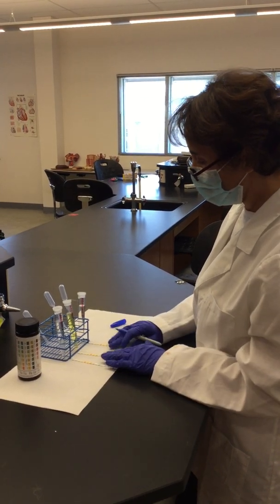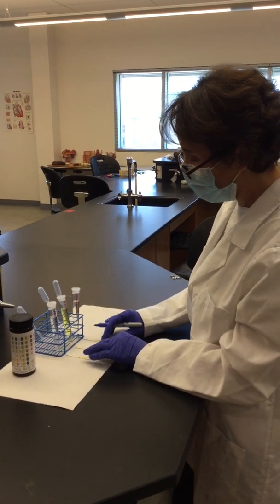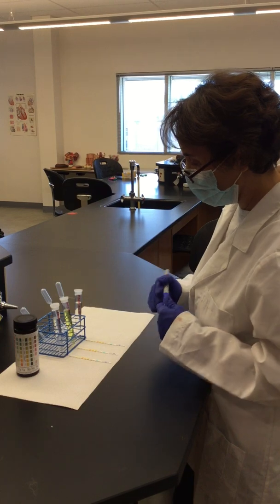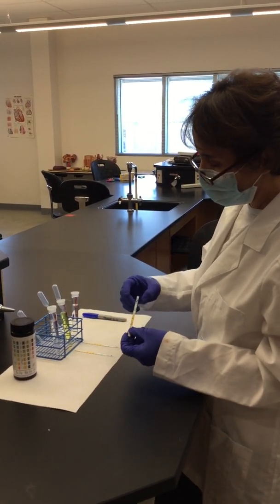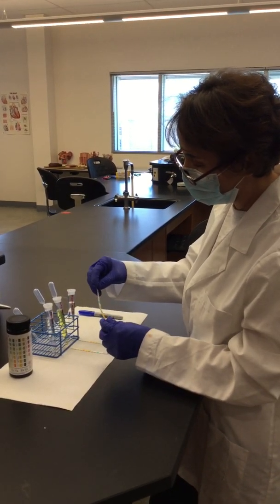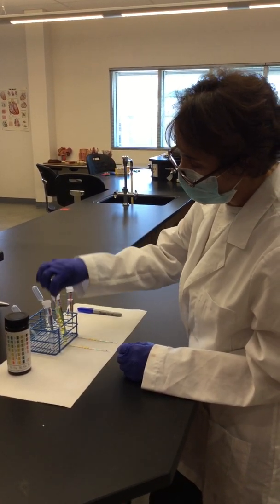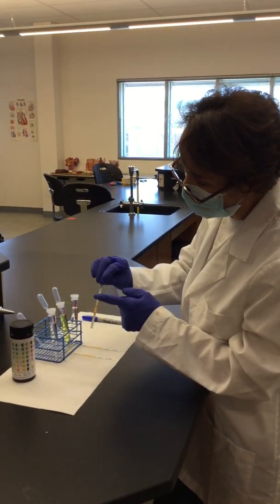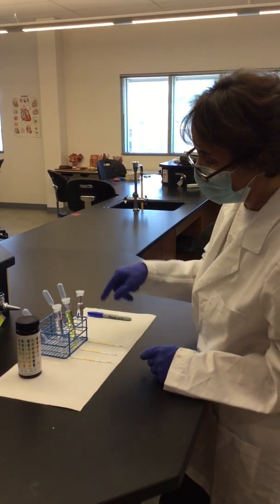Now, when you're done, you can either leave it in this alignment and take a picture so you can keep a record of your results. And what you will do for this urinalysis is grab this strip by the edge, dip it inside the test tube, drag it immediately out, and you have to cover all your squares with urine, and then put it here on one side, and then you can start reading.